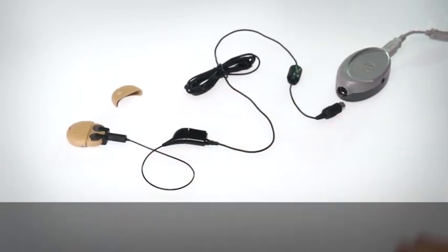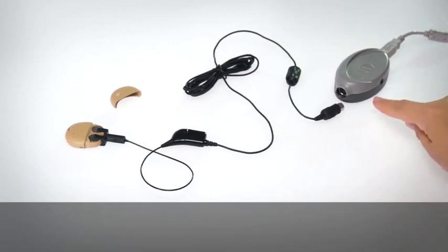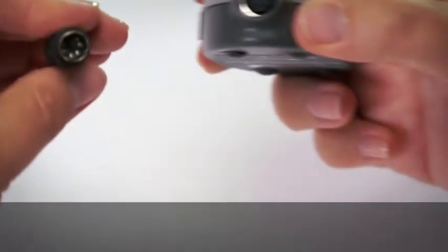Plug the other end of the Kanso adapter cable into the programming pod, which is connected to your computer.